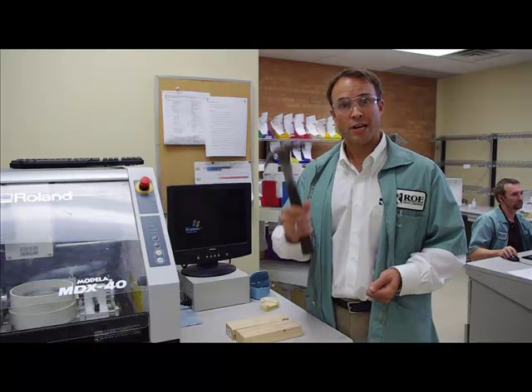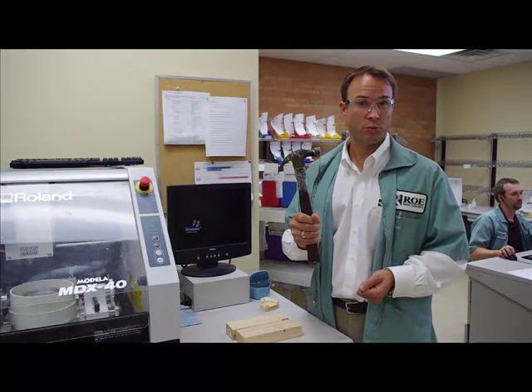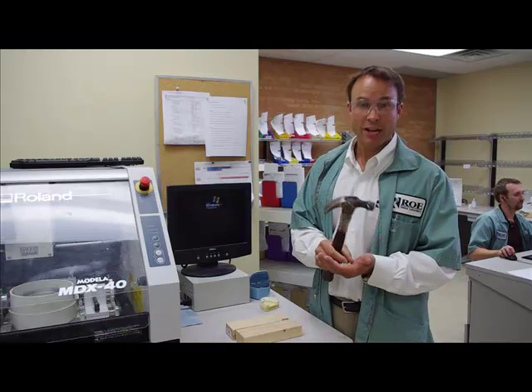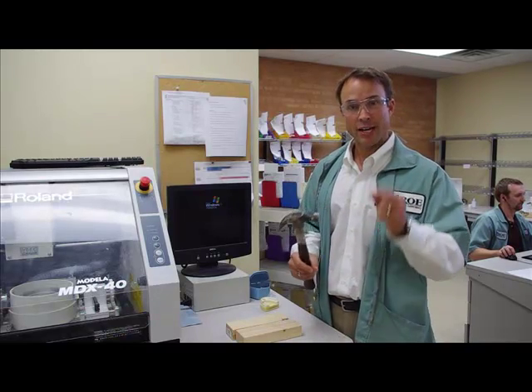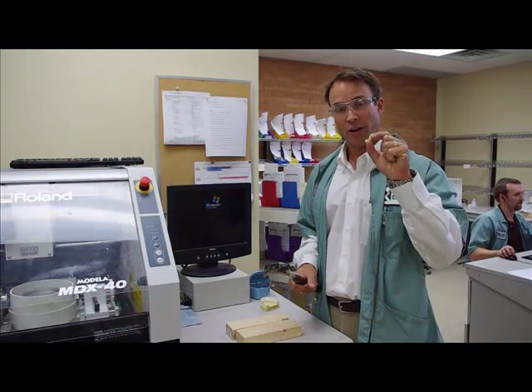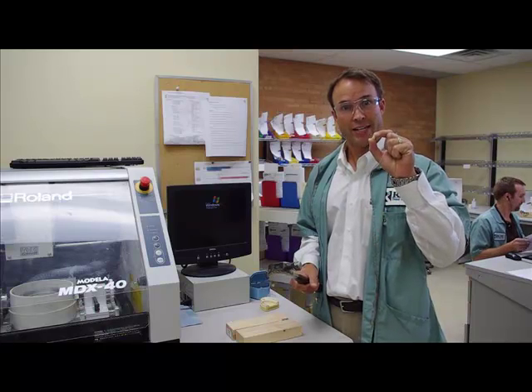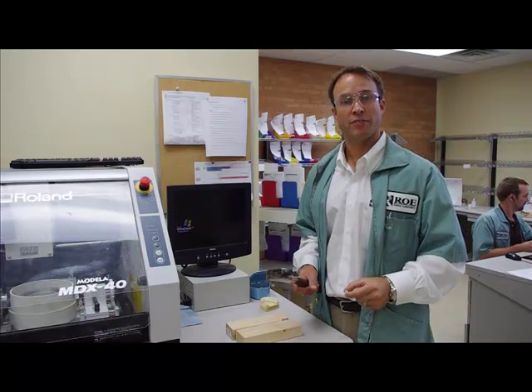We are going to smash each one of them with this hammer and see which one can withstand it. Mind you, we have used the same TLZ all zirconia crown in all of our tests to date, same crown, no fracturing, tough stuff.